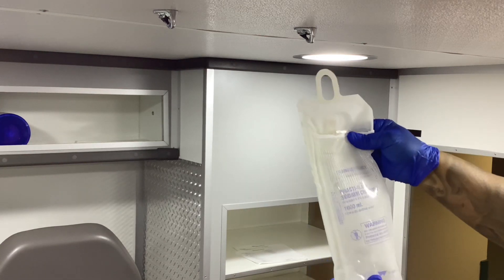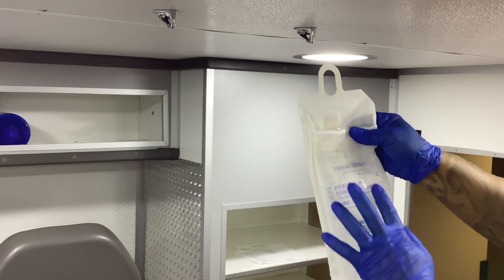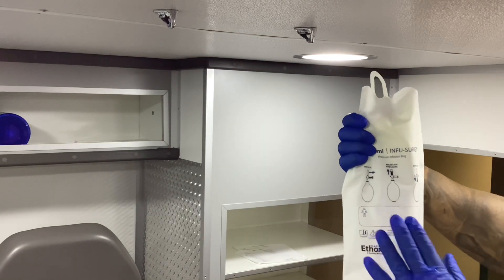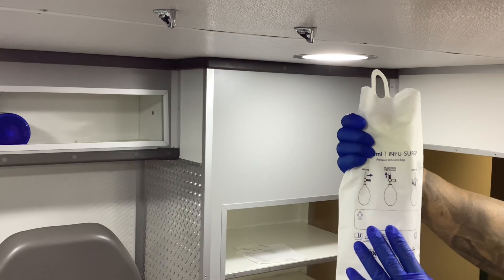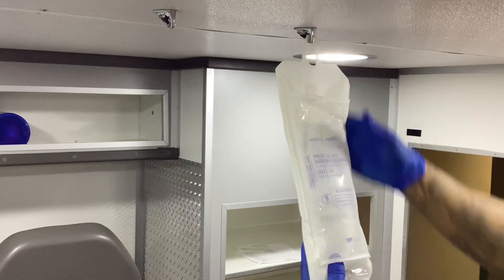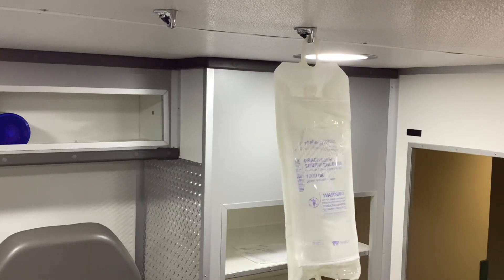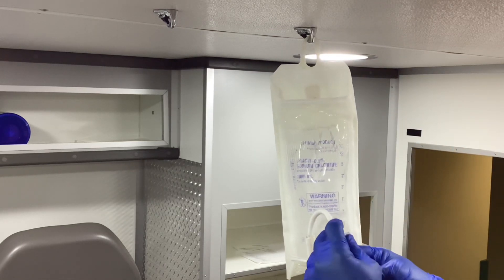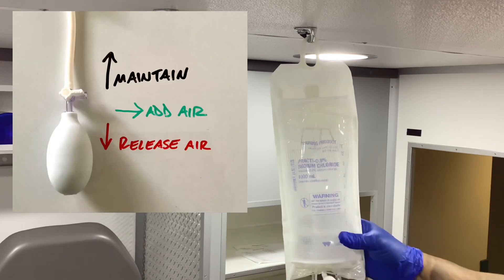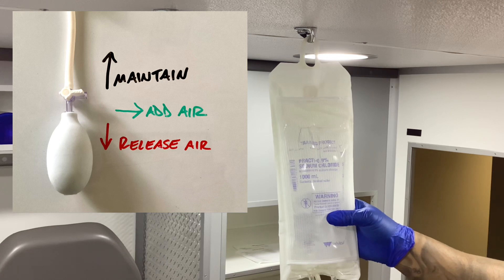Keep in mind that we want the labeling and our measurements on the netted side, because you won't be able to visualize the amount of fluids you're giving to your patient or how many you have delivered so far on this side. We're going to hang our pressure infuser. Keep in mind that when you go to the 3 o'clock position, this is where we're going to fill up the air inside of our pressure infuser.